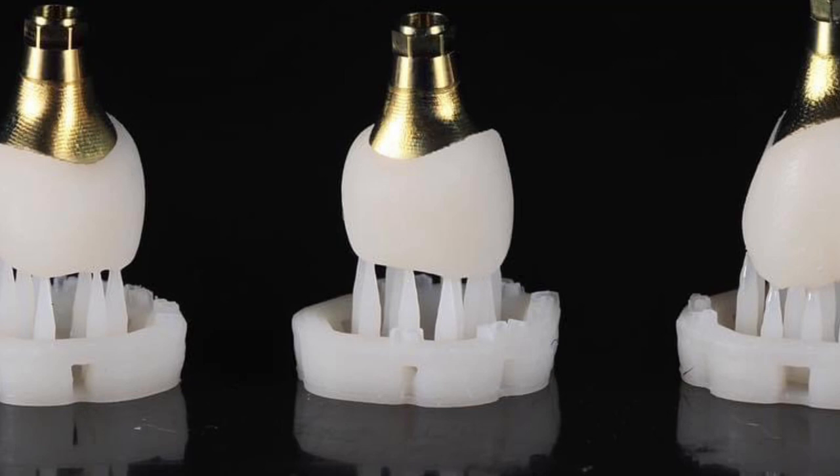The other one is the fact that there are no PDL spaces on an implant, so what you want is a material that's going to be dynamic and fluid, just like the other teeth in the mouth that can wear slightly. And lastly, we have a lot of evidence that shows that 3D printed restorations are superior in every way to direct resin restorations, where there's over a 97% degree of conversion of the resin, whereas with a direct resin you only have about a 60% degree of conversion of the methacrylate esters, the double bonds.